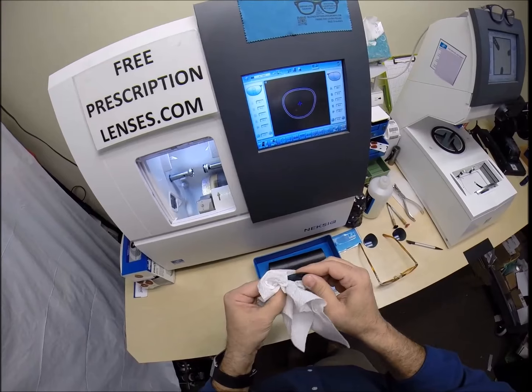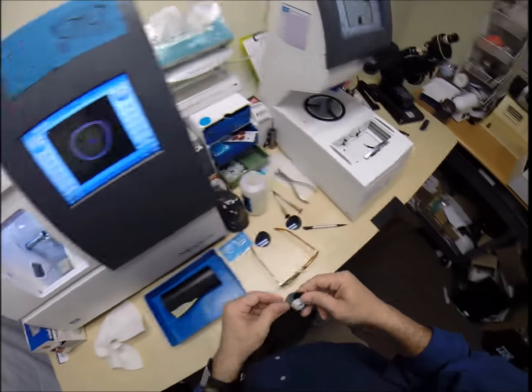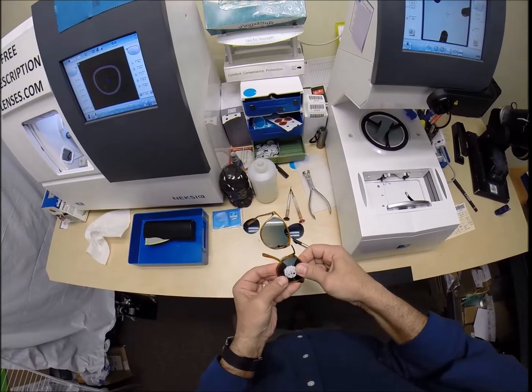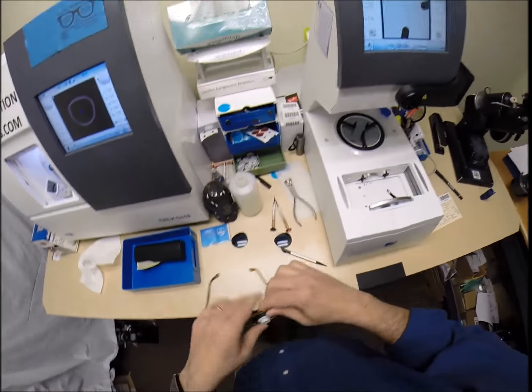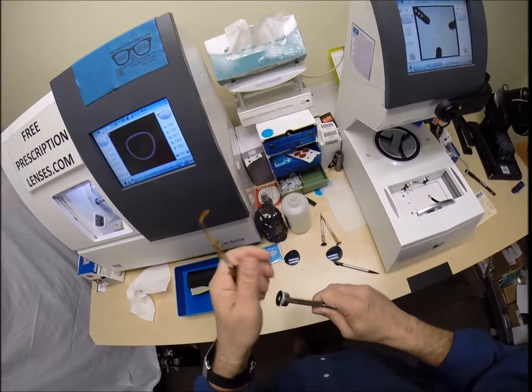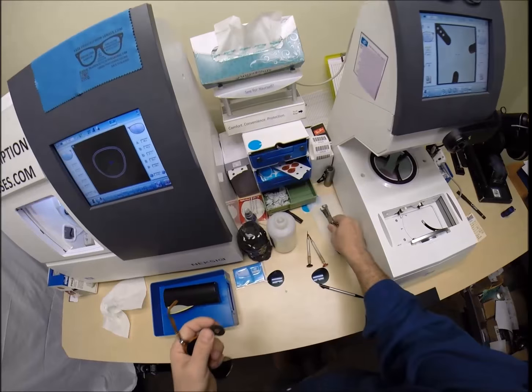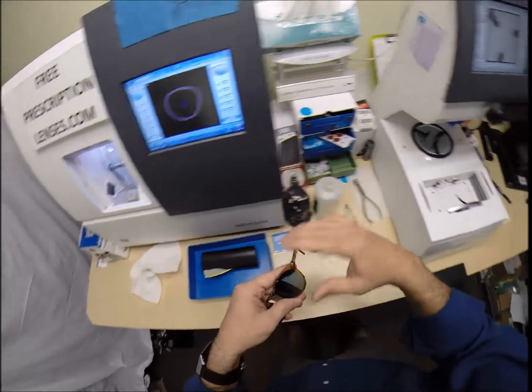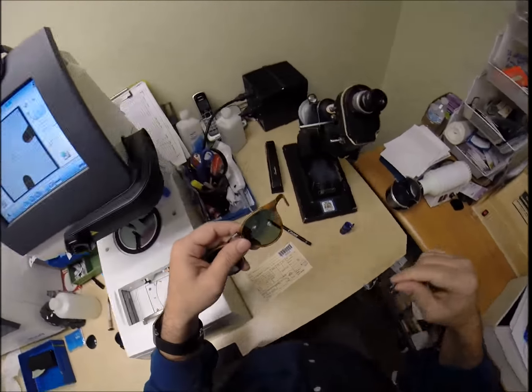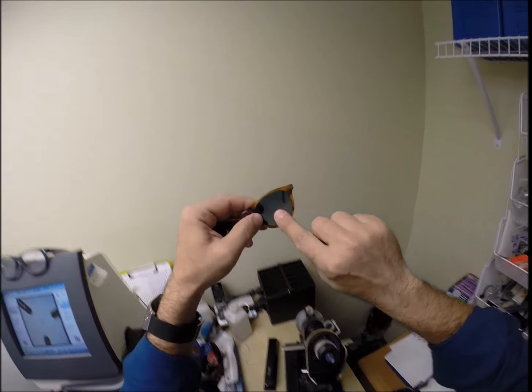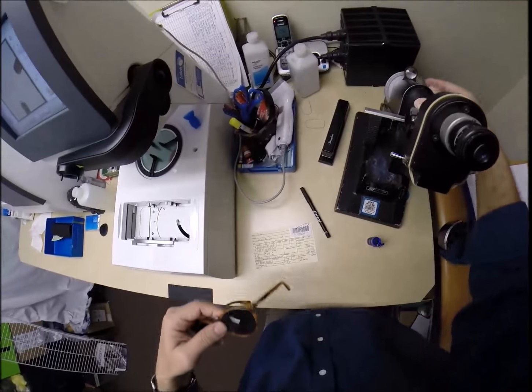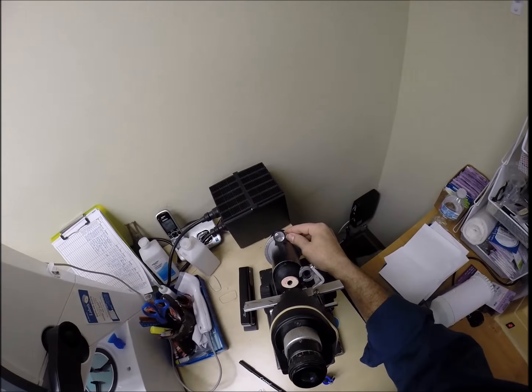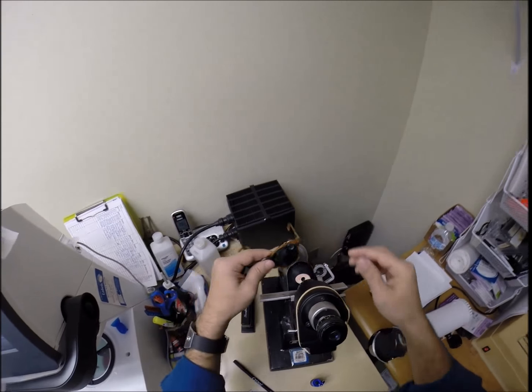Let's dry everything off. Let's go ahead and pop the left lens in if it will go this first time around. And it does. Let's go ahead and take the block off. Dry the block off. Get that used. Put the sticker on top there. And we're going to come down here and place it over that, hopefully you can see the black dot, your pupillary distance. Move that back to 4, the meridian for your left eye. Put that in.